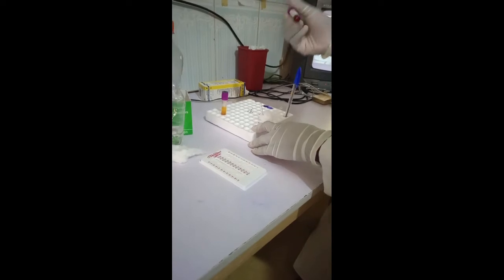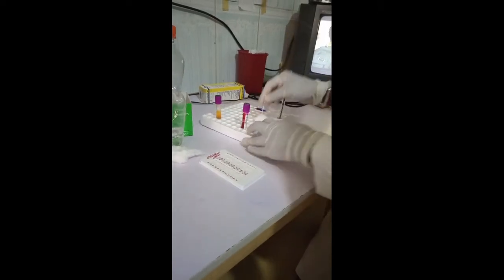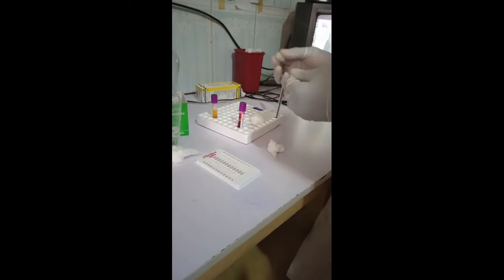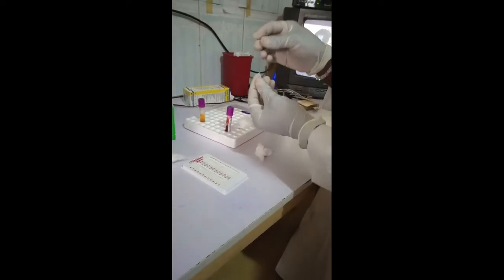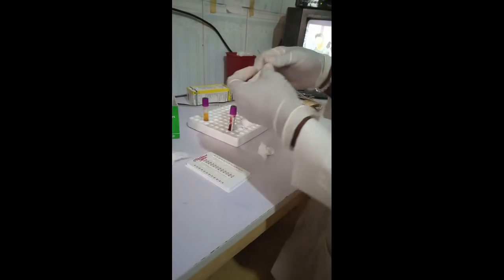As you can see, this is our blood sample and we will be needing a capillary tube. This is how a capillary tube looks like. This is how the tubes look like.